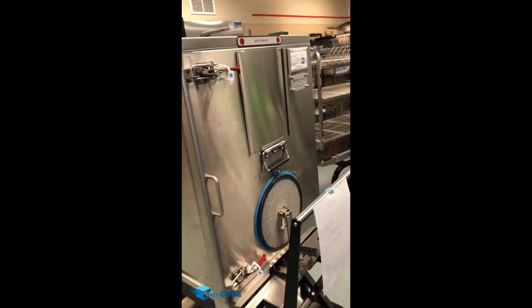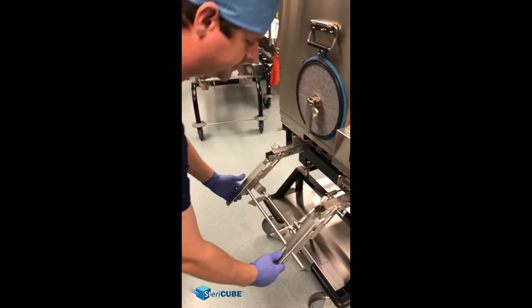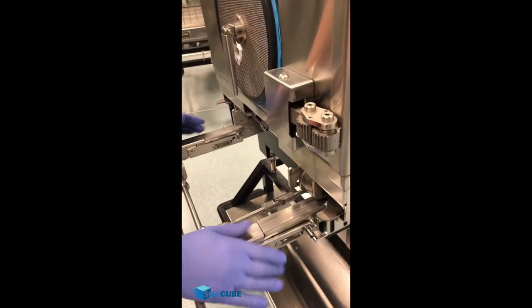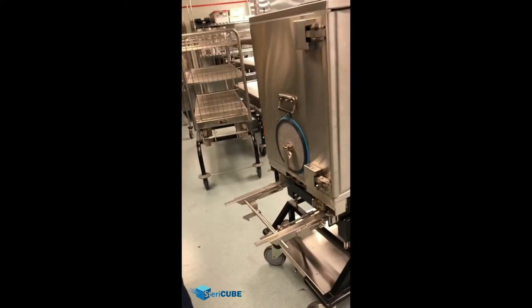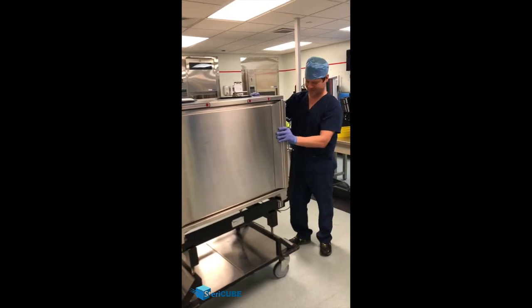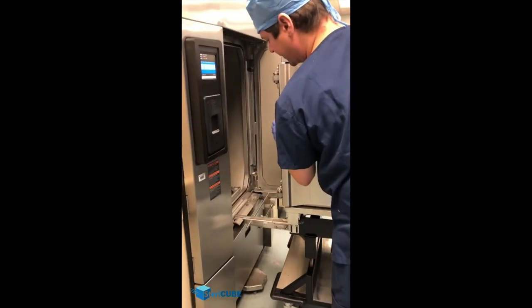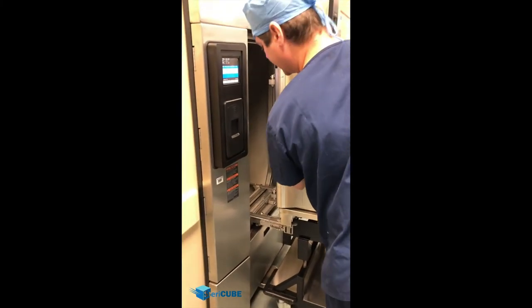The integrity locks are on it, so we know it's ready for sterilization. First, come around the forks and lift those into place. You can see they're locked down at the moment. Put these tabs up to unlock the forks, pull them towards you, lift them up, push them back so that this is seated right here — that way it's locked into place. Turn the tabs towards you so that the forks are locked.